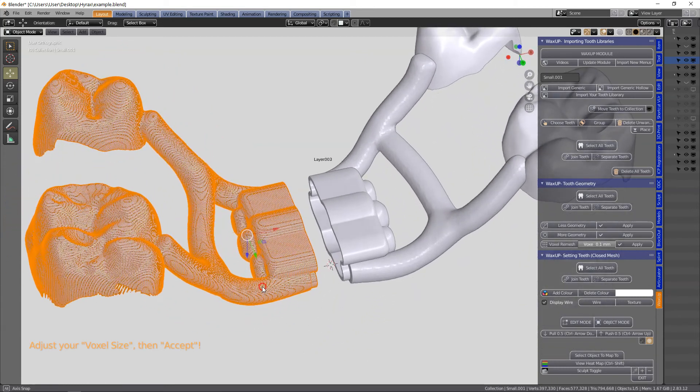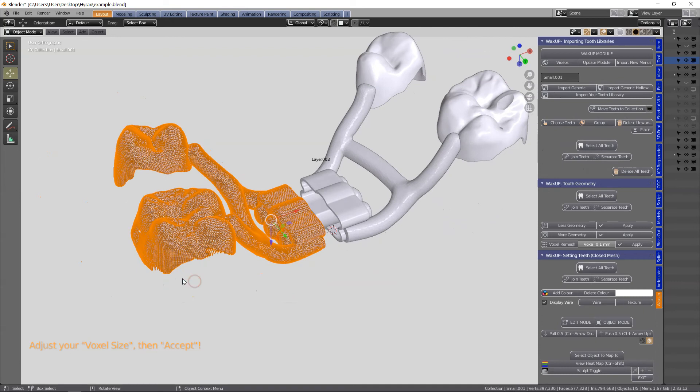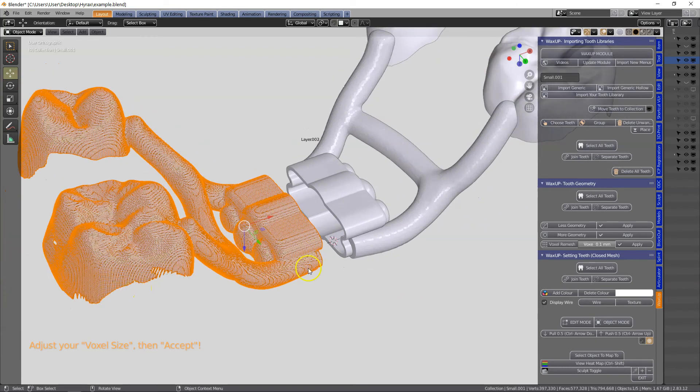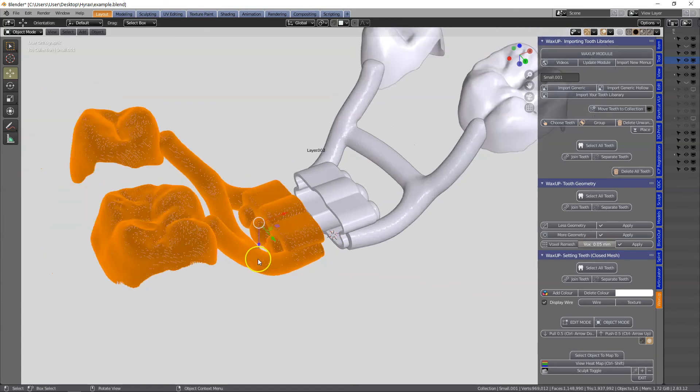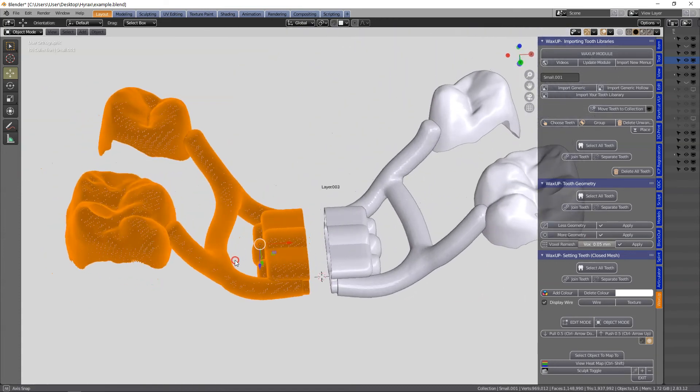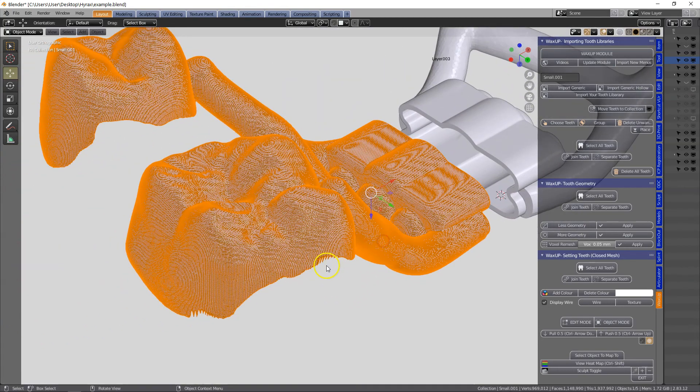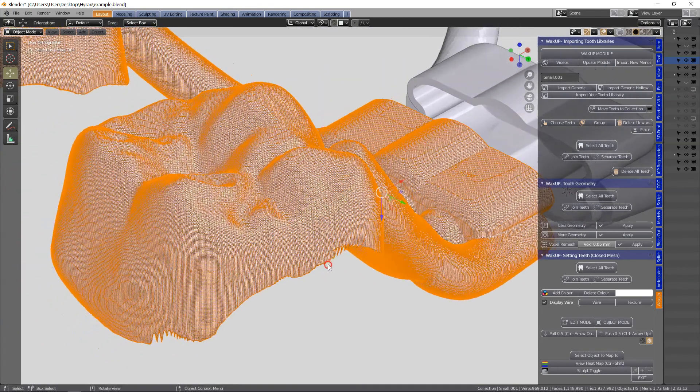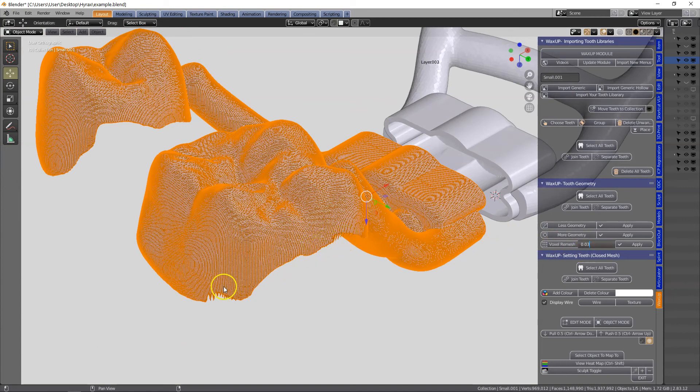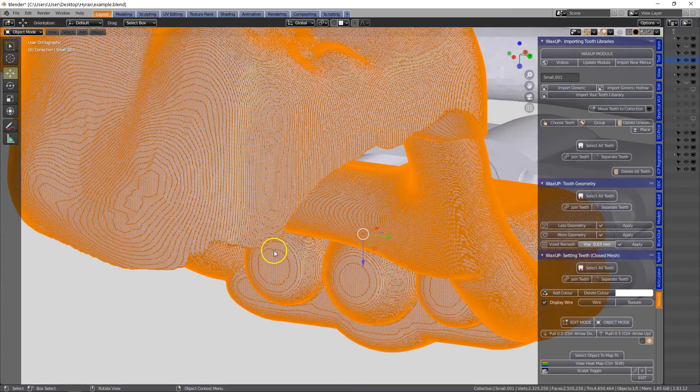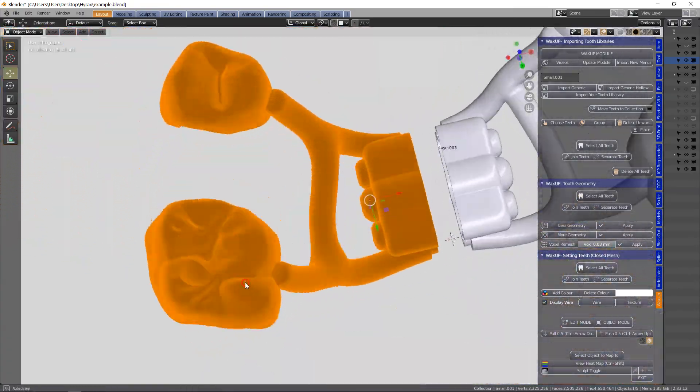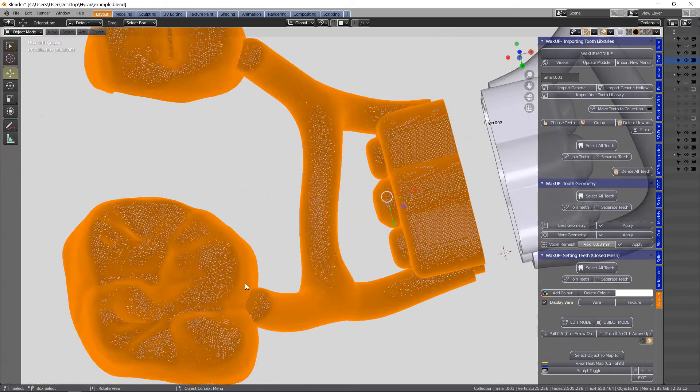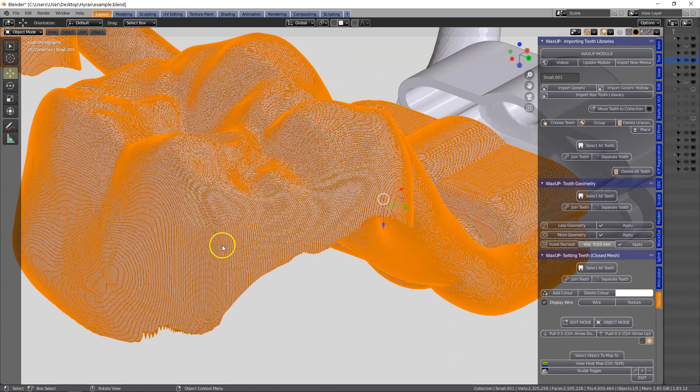Now I'm going to go a little bit finer. Note also that we have lost a little bit of surface there and that's because it's been too thin, so we're going to put this at 0.05. But we've got a little bit of edges happening there, so if that had been thick enough then we would have gotten a nice edge. As you can see the entire component has been remeshed into one.